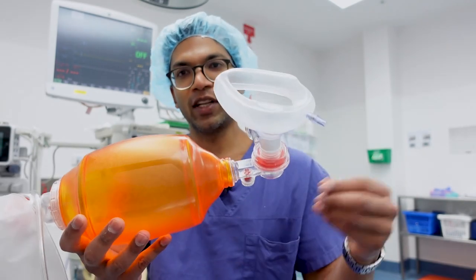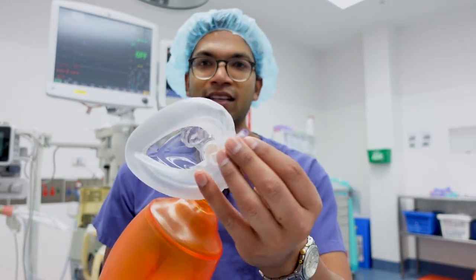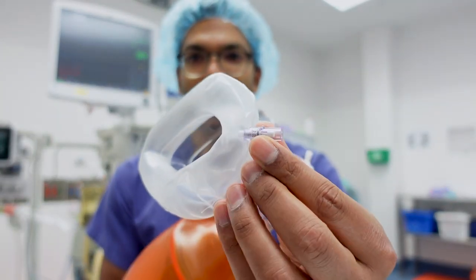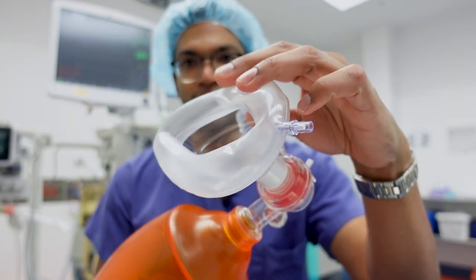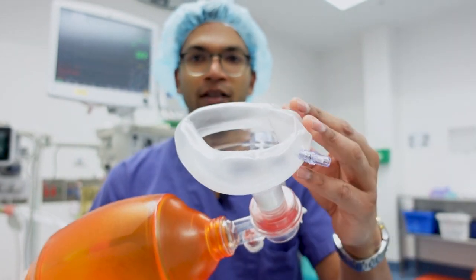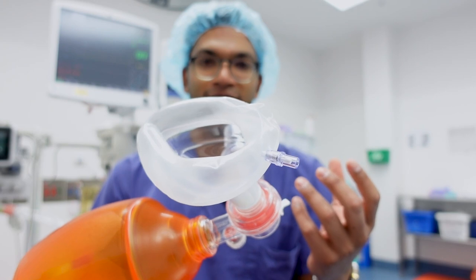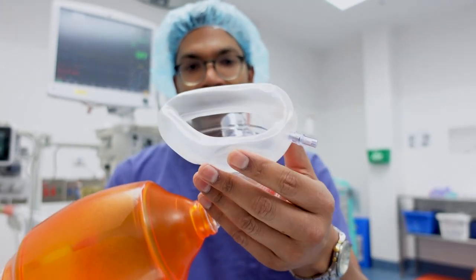First of all, I can attach a mask. This particular mask has a little port here so you can inflate it, which means you can get a really nice bouncy seal that forms to the face and covers any gaps that might be left. So really great for making a seal.